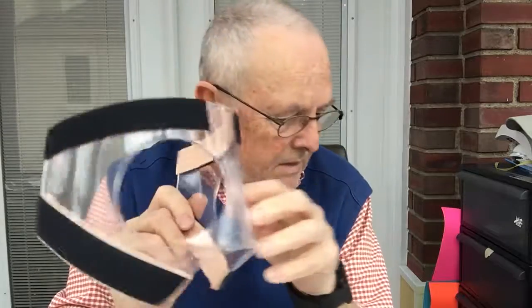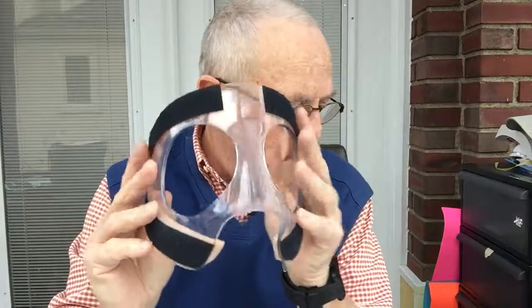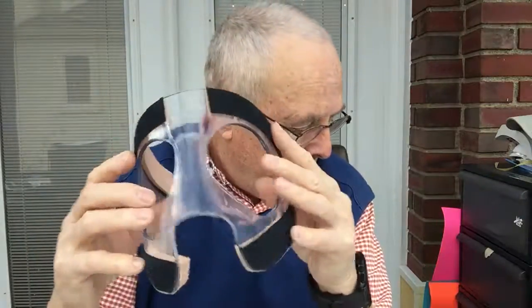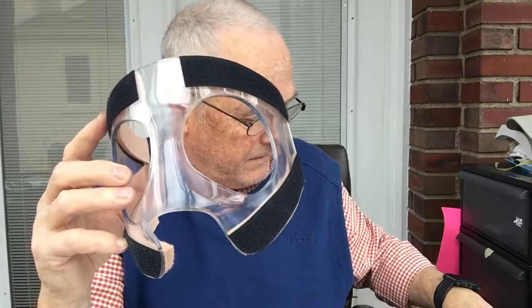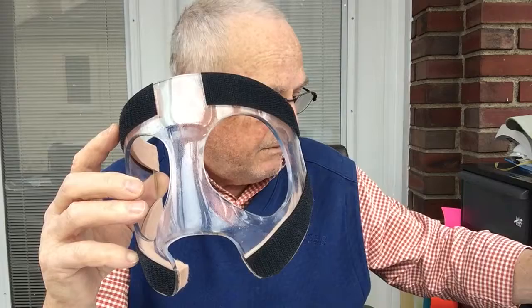It's Clyde Indian Brace Company. This is my Hoosier basketball mask going to Dawn in Bloomington, Indiana. And Dawn's son — six foot five, couple hundred pounds, basketball player.